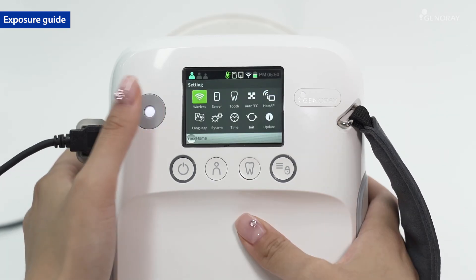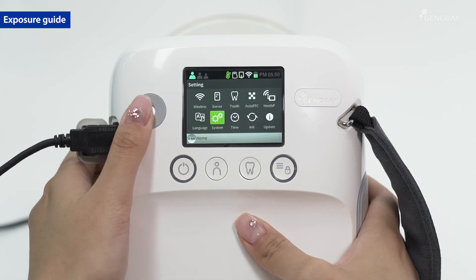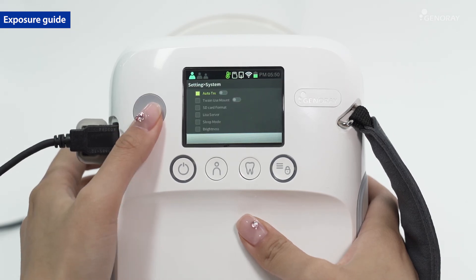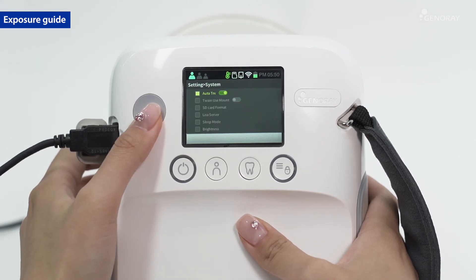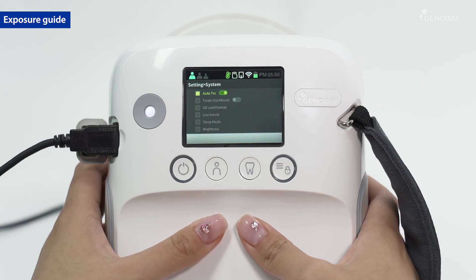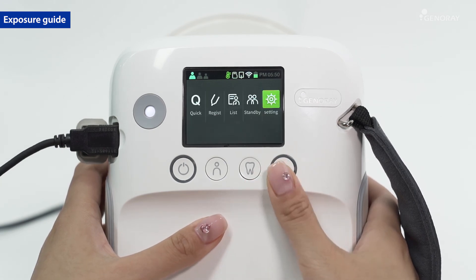All images are automatically saved onto the microSD card. You can have the transferring of your images to your PC automated by setting the preference in the settings window.